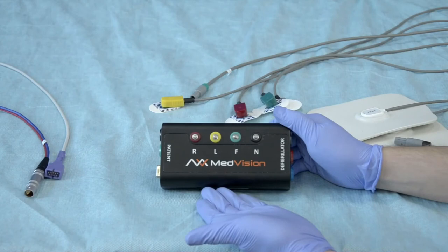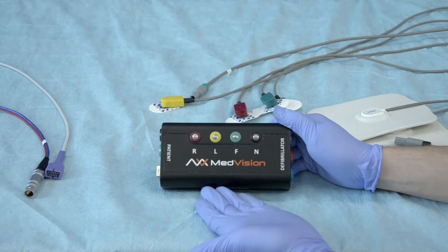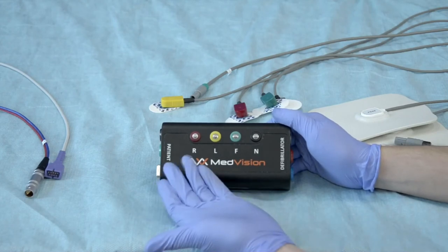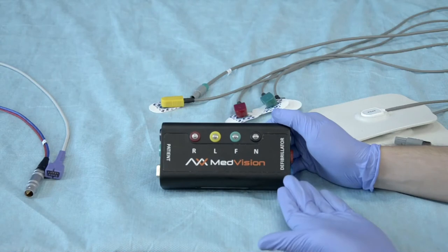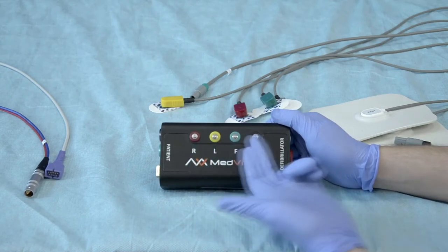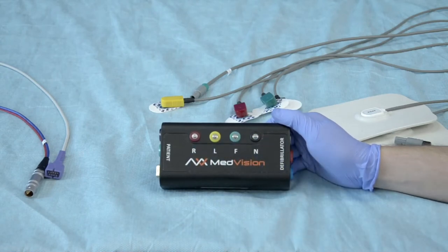Let's take a closer look at the adapter box. It has two sides — one for patient connections and one for defibrillator connections — and on the face plate there are connections for real ECG electrodes.